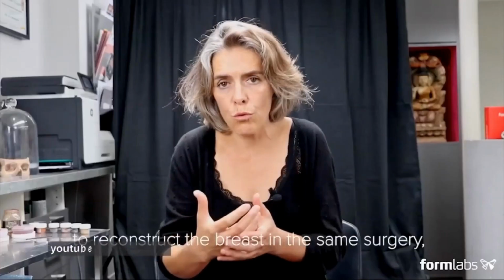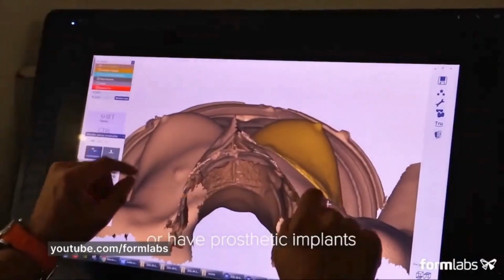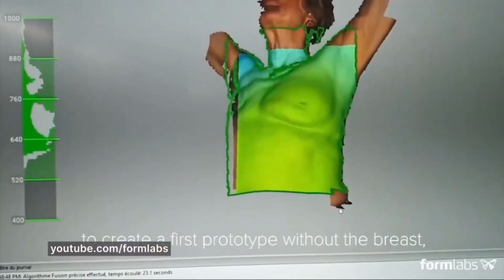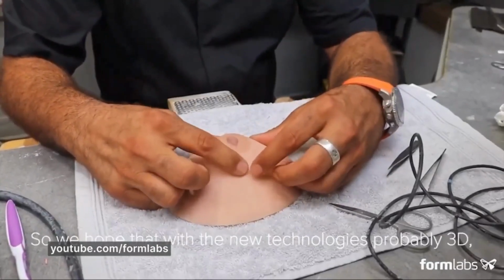In France, there are 20,000 women every year who need a prosthesis after the surgery, and the standard choice, which they have, is limited to industrial options of 2 sizes and 2 skin tones, neither of which caters to black and brown women of color. Julien Montenegro makes personalized breast prosthesis, which softens the traumatic experience and helps create comfort and well-being for the patients.